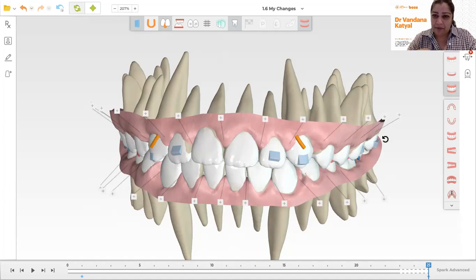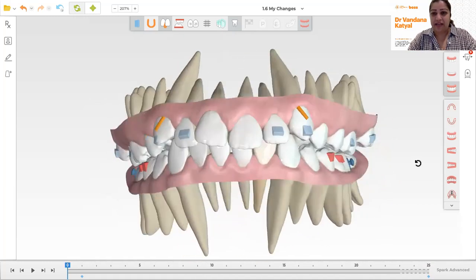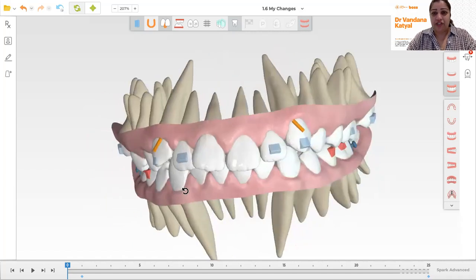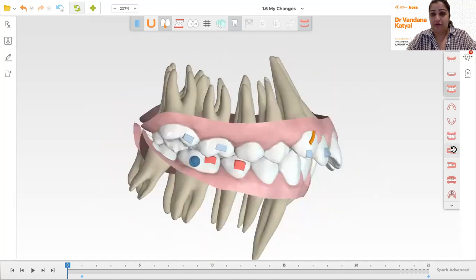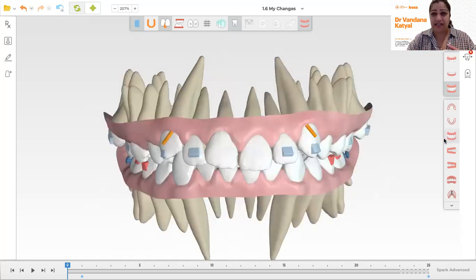I'm also finding I'm getting a little bit less posterior open bite. Let's have a look at this case — a teenage boy who has a Class II Division 1 malocclusion with overjet. You can see different views here: the anterior view pre-treatment, the buccal view from the right side pre-treatment, and the buccal view from the left side. I've given initial instructions to the technicians: we're going to correct Class II sagittally, correct the deep bite vertically, and also align and expand the dental arches somewhat because he seems a bit narrow in his premolar-molar region.